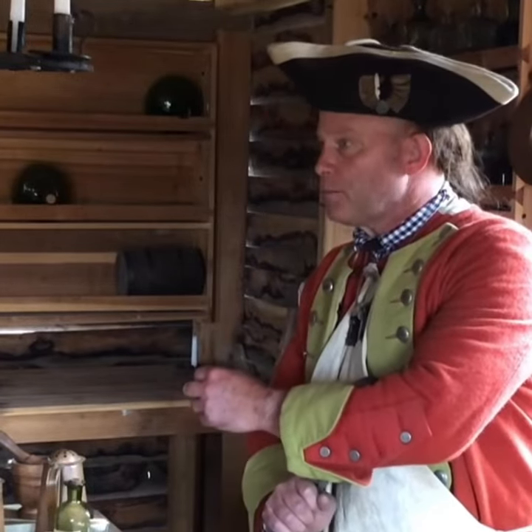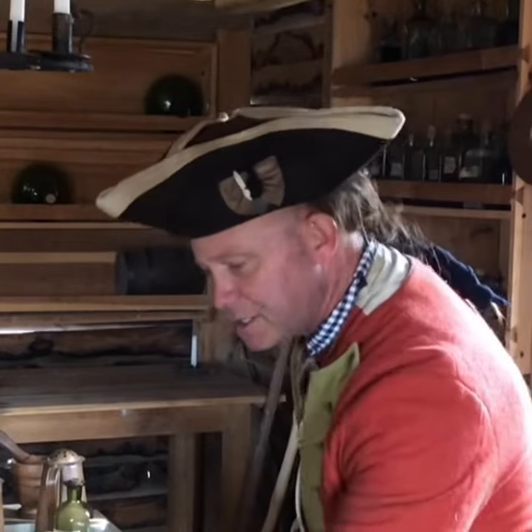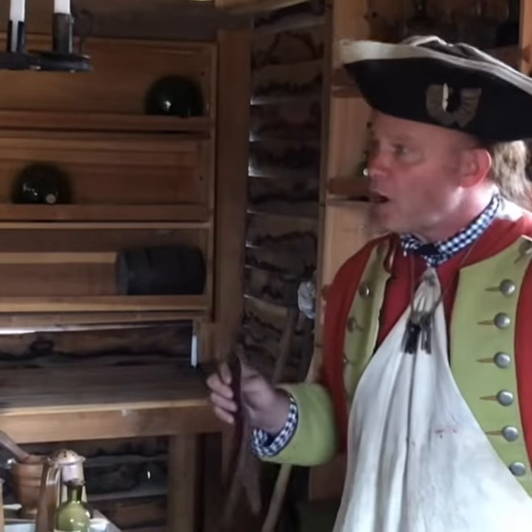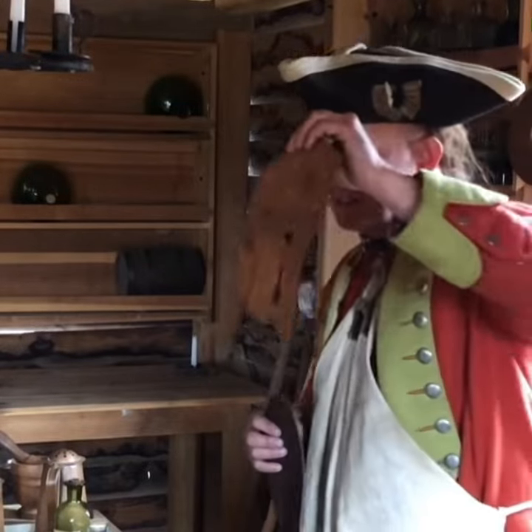To go through the flesh and to the bone, but not through the bone, with this capital knife. Once that's done, I choose one of my separators. If it's the upper arm or upper leg with one bone, I use the one with one hole. The lower with two bones, I use the one with two holes. The next thing I do is saw through the bone.